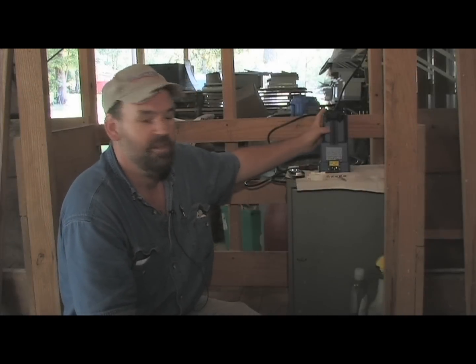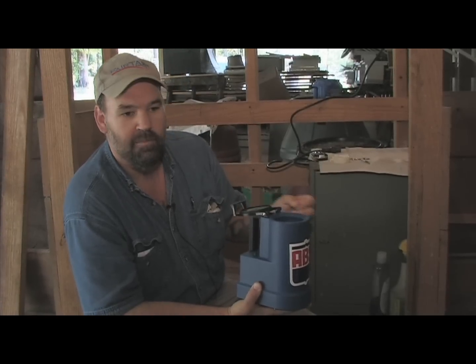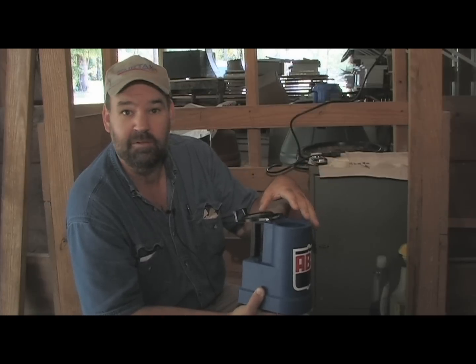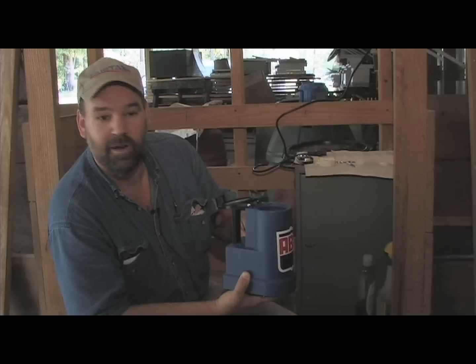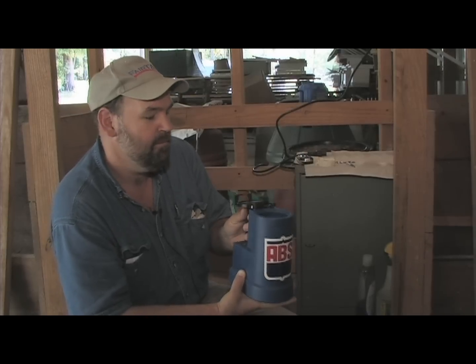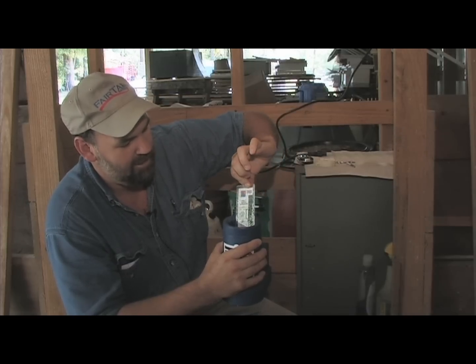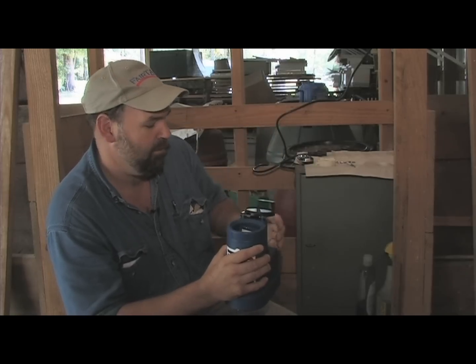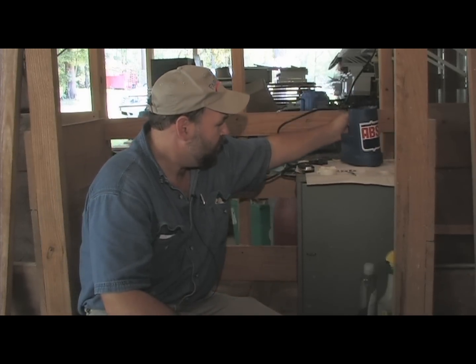The next major part of this is a thermos. It keeps the water between 94 and 98 degrees, which is just right for semen. You don't want to come out here with hot water from your tap and pour it in, because chances are it's a lot hotter than that and you'd kill the semen. So you just plug it in — it's got a green light and a red light — and when the green light comes on, the water temperature is just fine. You can check it with this little backup gauge. Right now the temperature is about 90 degrees; I haven't plugged it in yet. It takes about 10 or 15 minutes to calibrate.